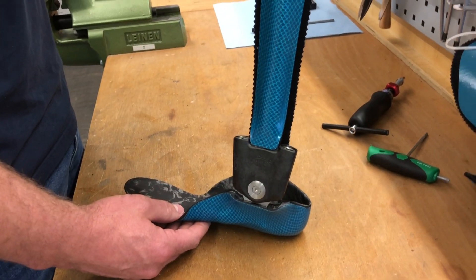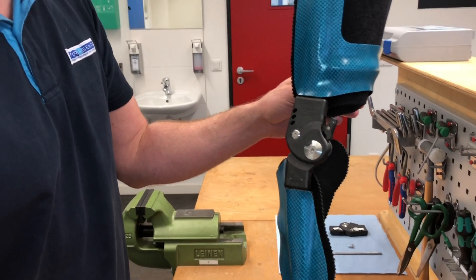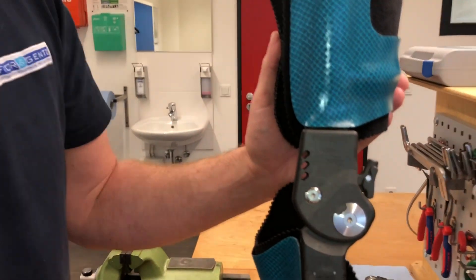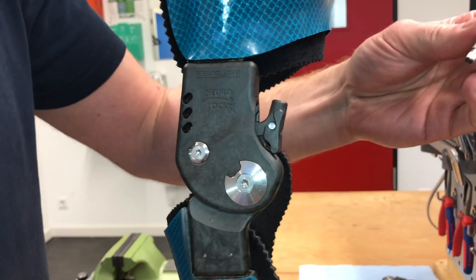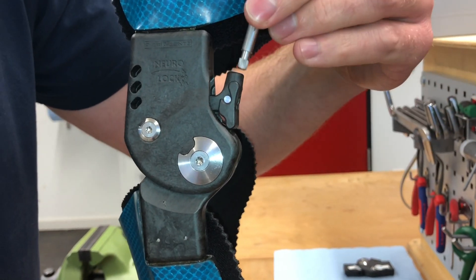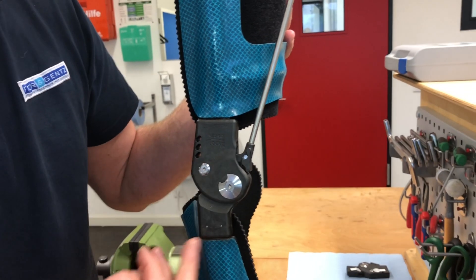This means that with the NeuroSwing H2O, the NeuroLock H2O, and the NeuroClassic H2O, we now have waterproof and dirt-resistant joints developed for all-round everyday use. I think that with these joints we have filled a market gap that was still missing for many orthosis users for their daily activities. As you mentioned earlier, it is an option for those who have rougher activities like in the construction or landscaping business, but the unlocking with such a small lever may not be so easy. Oh, no worries, that is not finished yet — I am still assembling the sample orthosis. The joint is always delivered with a locking lever extension bar. You can see a small knurling at the bottom, which makes it easier to glue the locking lever extension into the slot. The gluing is done with the same two-component adhesive used to attach the anchors into the joints.